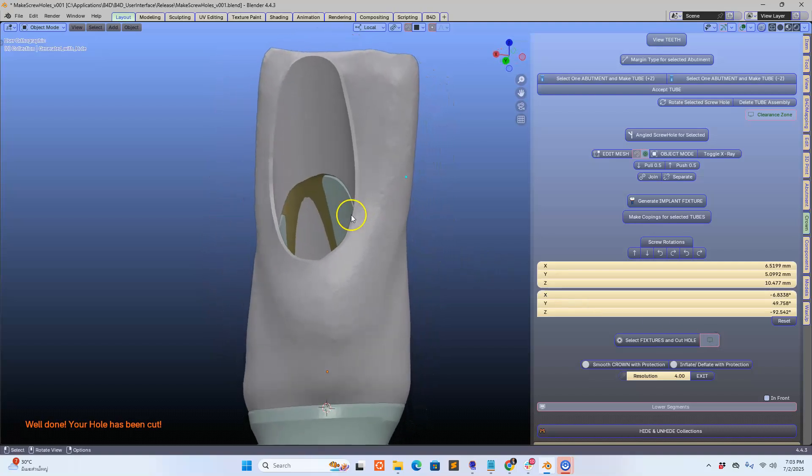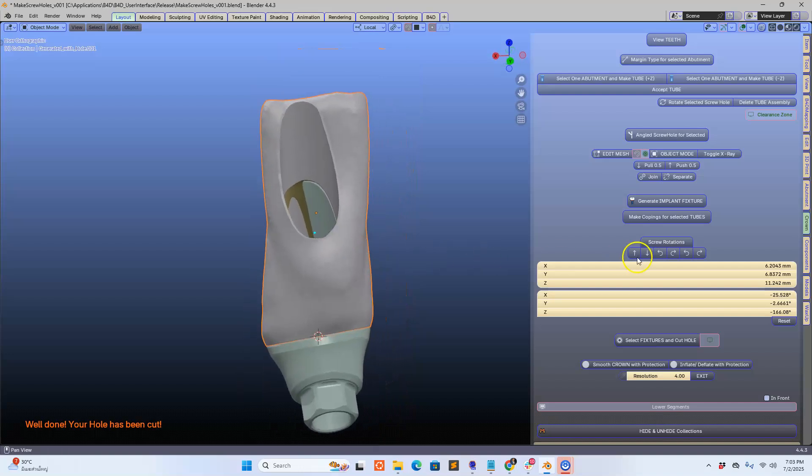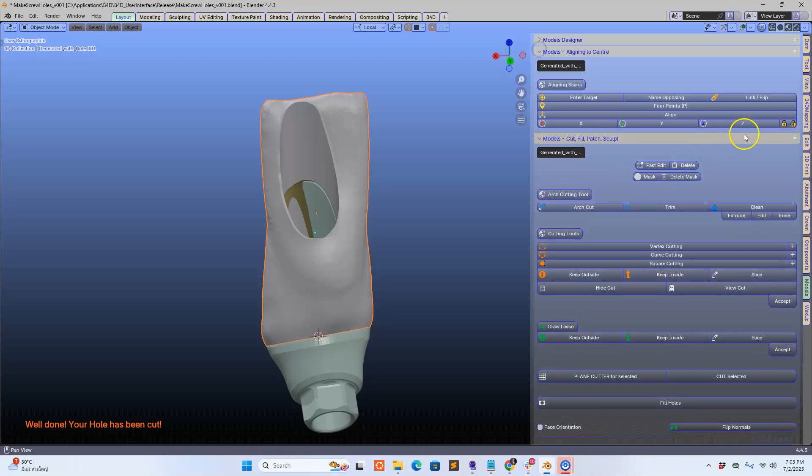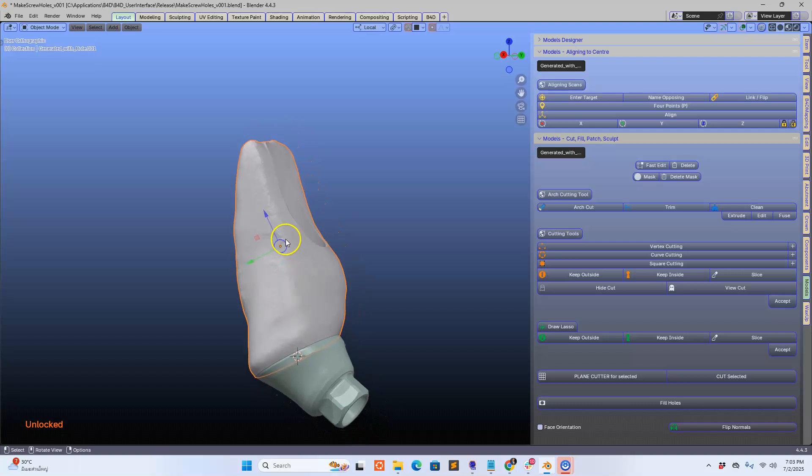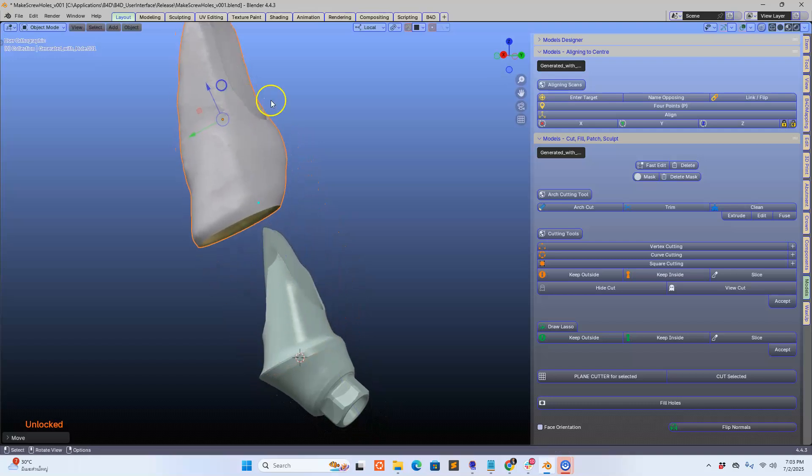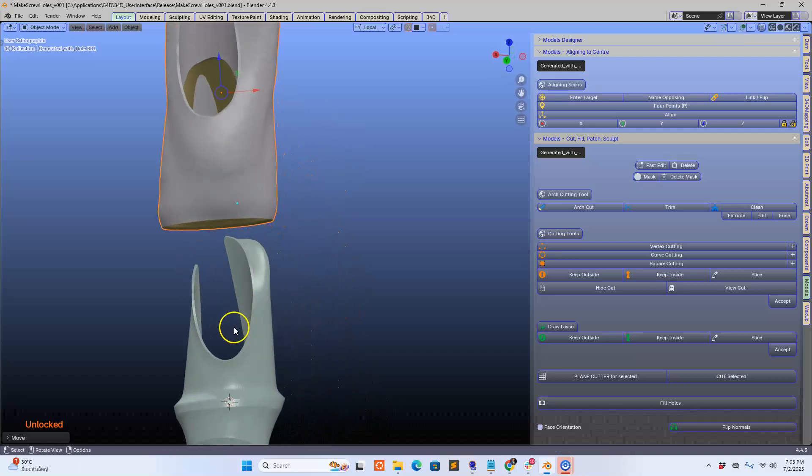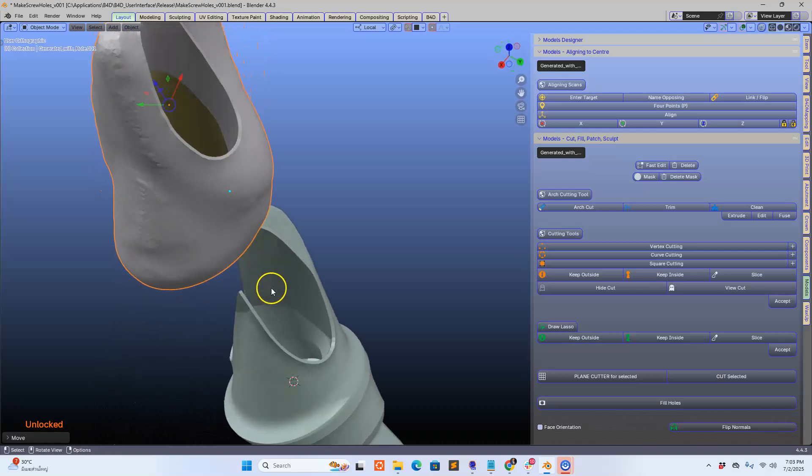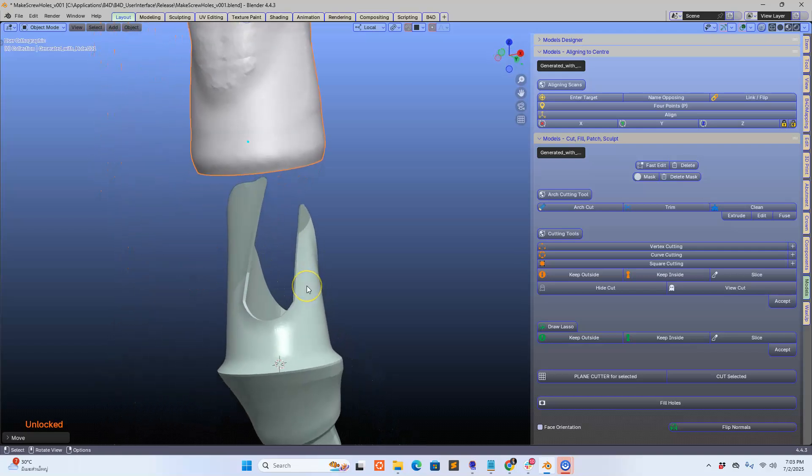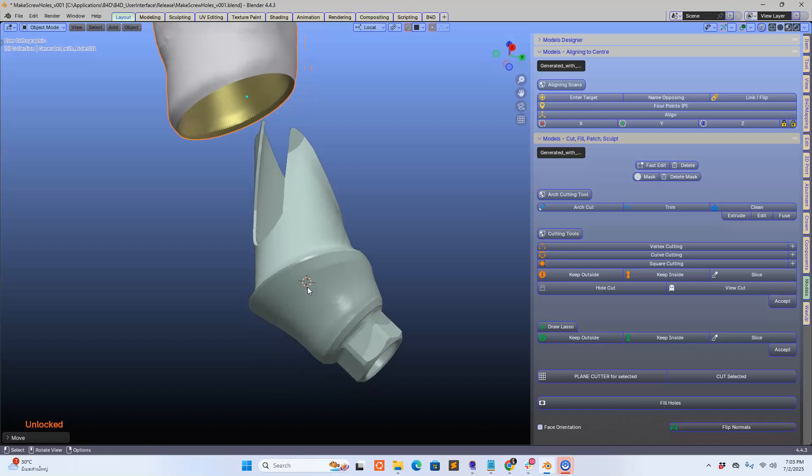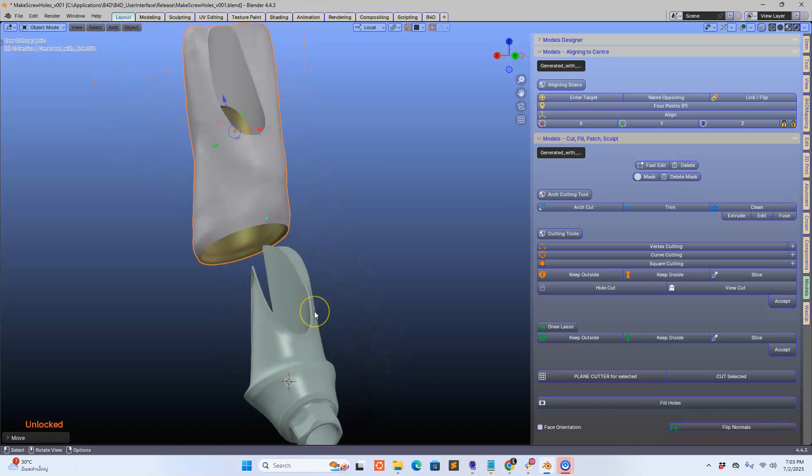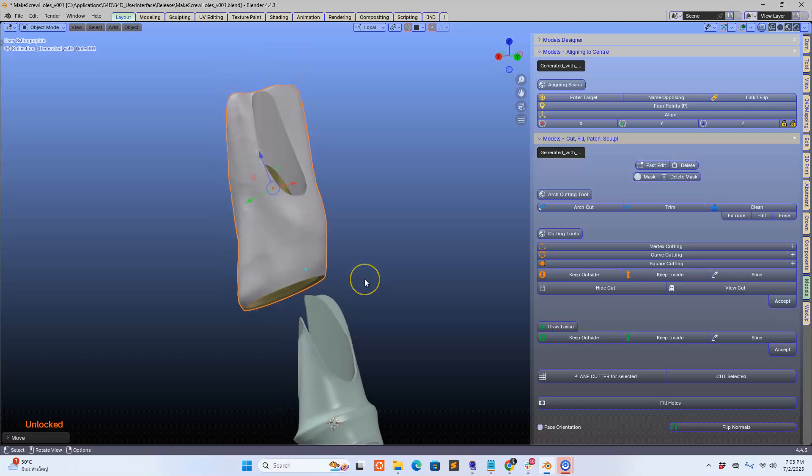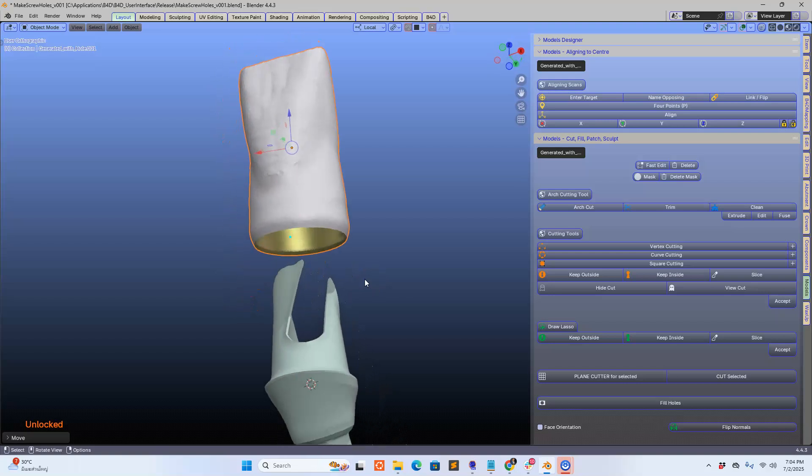Let's exit this and there's one more thing that we need to do. We need to make another hole into this custom abutment, so I'm going to select it and click on this one, and hopefully that's going to make my other hole come true, which is great. So here we go, we've got our crown. I'm going to unlock this crown and move it upwards so that we can actually see it more in an exploded view. You can see how it's cut, quite incredible workmanship here.